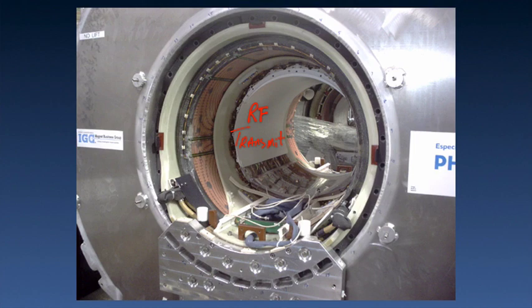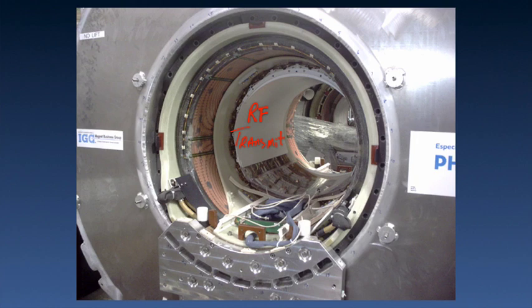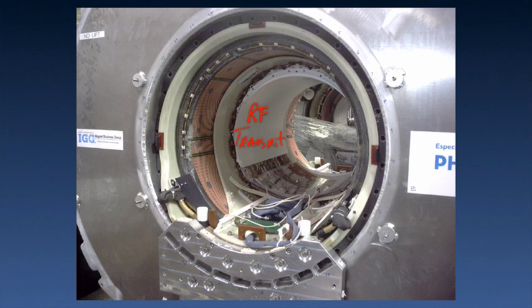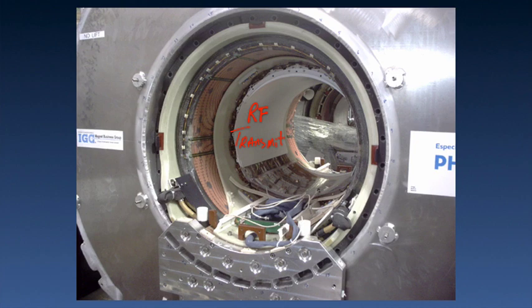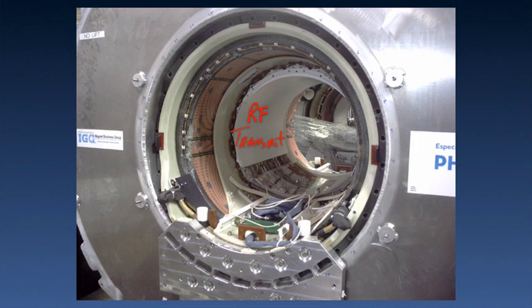Here is an example of an integrated body coil within the bore of a high-field superconducting system. This coil can be used either as a transmit-only coil or a transmit and receive coil. With today's technology of multi-channel coils, we rarely use the integrated body coil as a transmit and receive coil anymore — mostly it's used simply to transmit. However, these coils can be used in either mode.